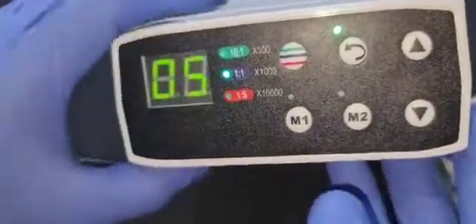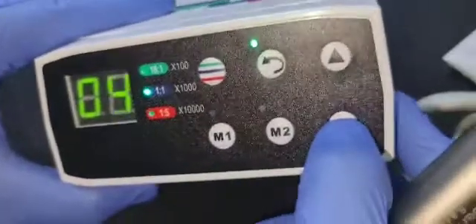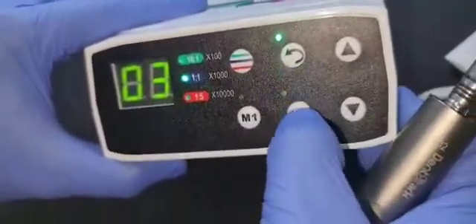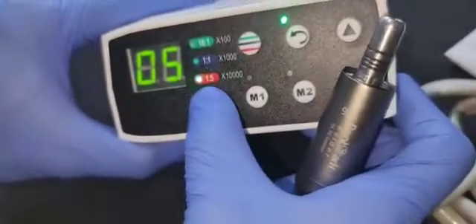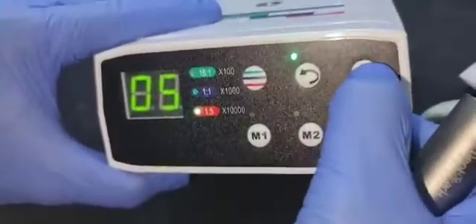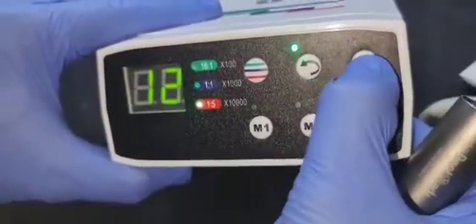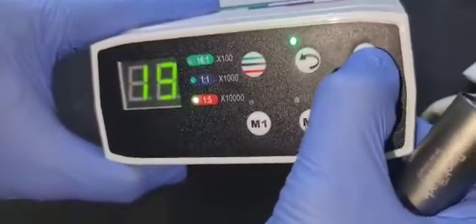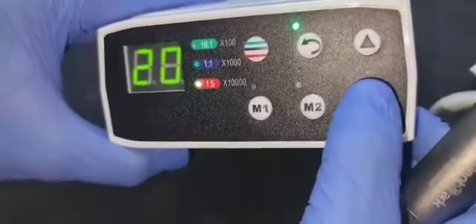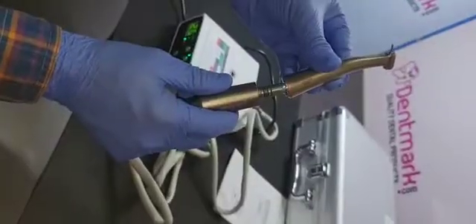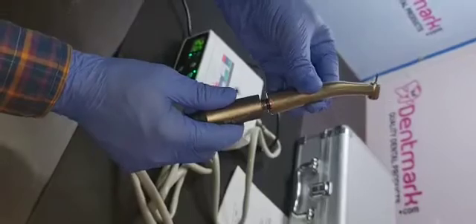So this is the setting point. 1 is to 5, and you can increase the speed. It will go up to 20. 20 means if you attach the 1 is to 5 contra-angle handpiece, it works up to 2 lakh RPM. 1 is to 5 contra-angle handpiece.